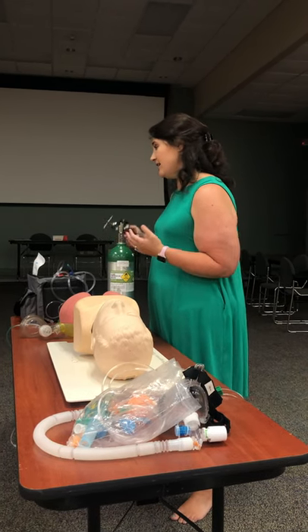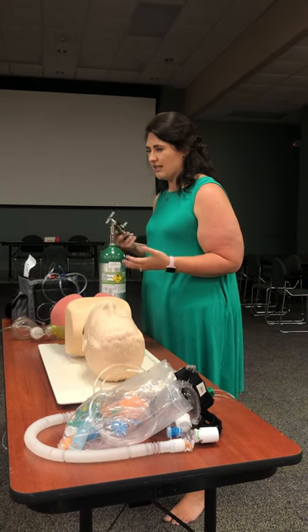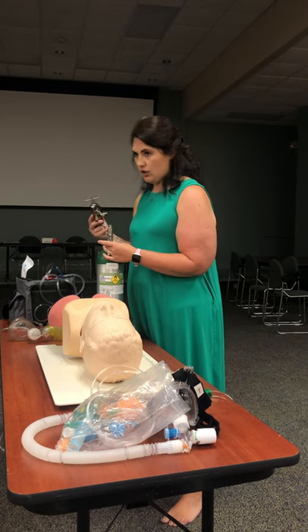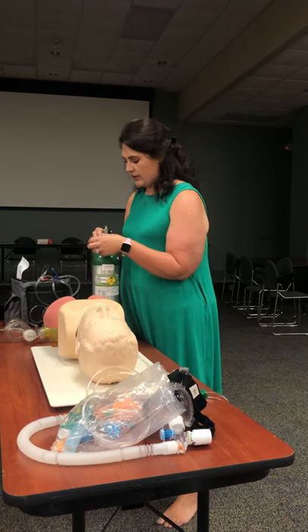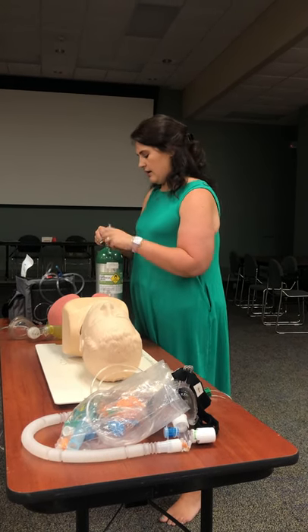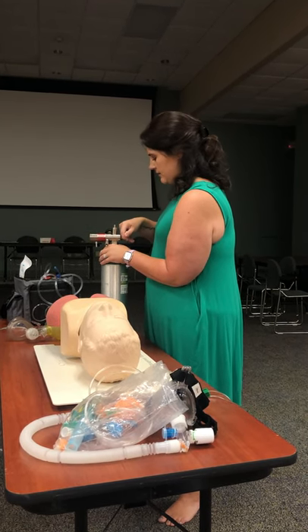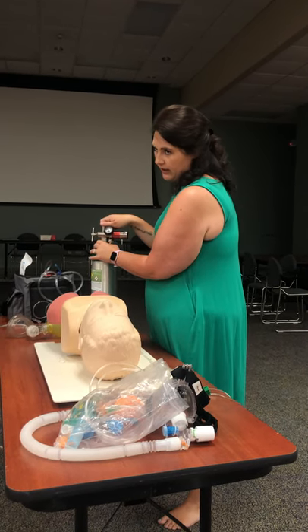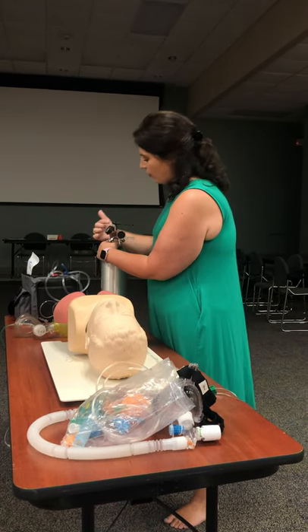You don't always need the O-ring, but if you notice a leak when you put the regulator on, you might need one. I'm lining up the holes, twisting the regulator tight, and I can use the wrench to tighten it down — though be careful because this wrench is plastic. Now I crack the tank open again. Ideally it won't leak.